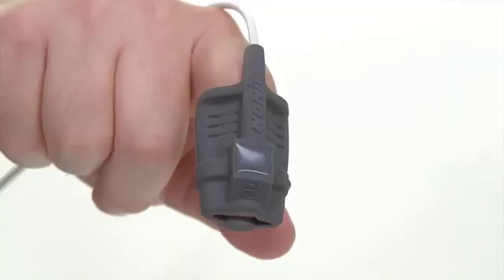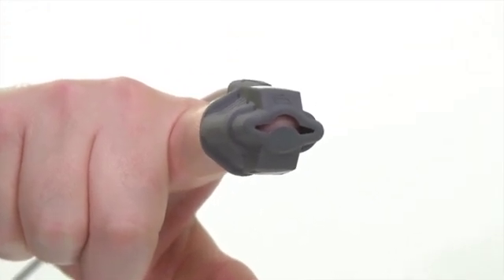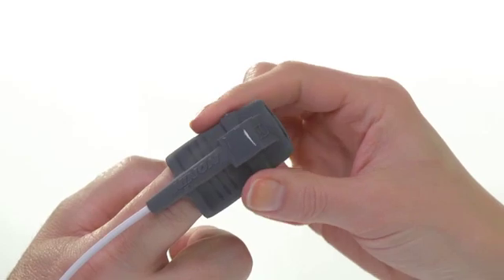The fingertip should be just at the very end of it, but not extending through the sensor. The sensor will gently hug the finger.